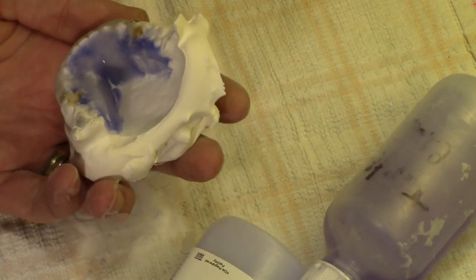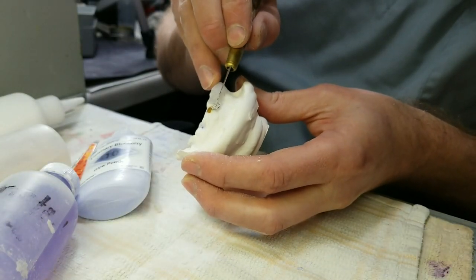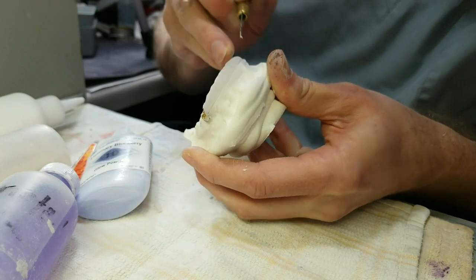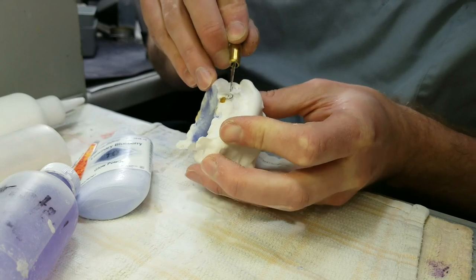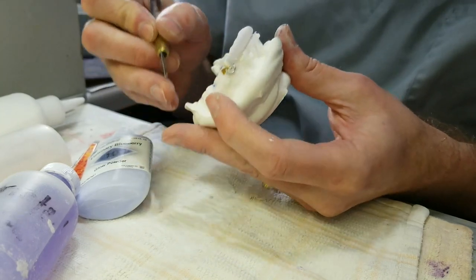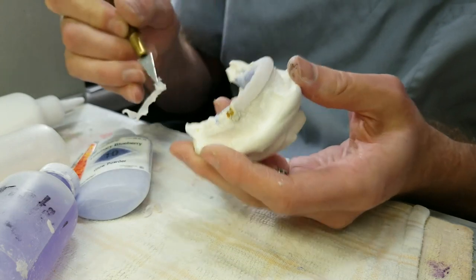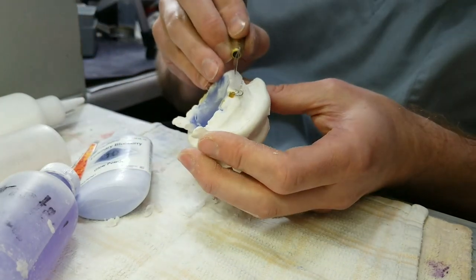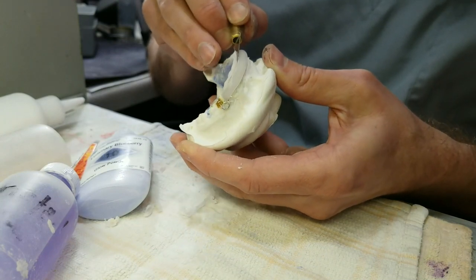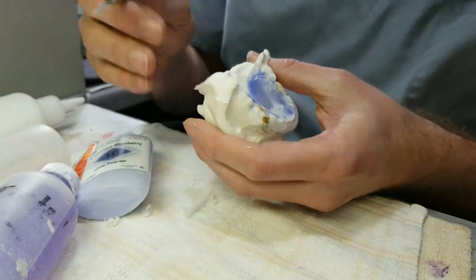I've got enough acrylic so this is a good front shot for what I'm about to do. I'm going to cut with my sharp knife. John, there are about three dentists that came out of my lab class — they were CDTs first, then went on to dental school. They made some extra cash on the side doing lab training for all their dental student friends.